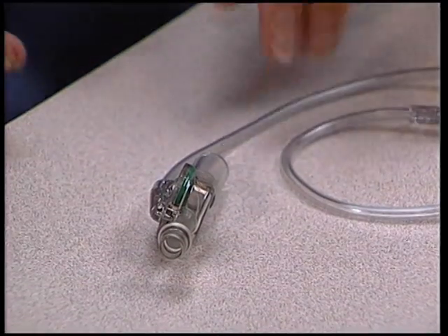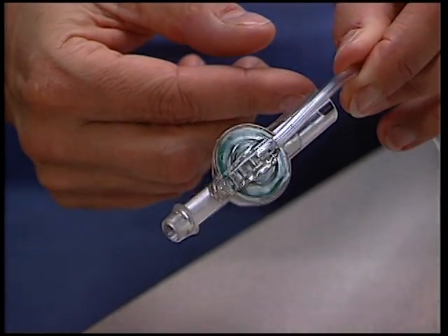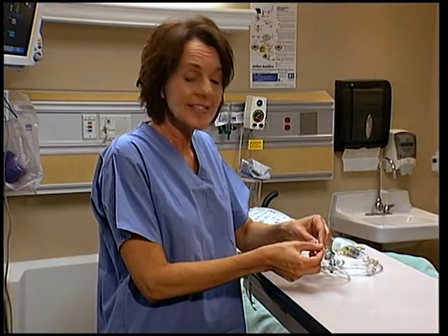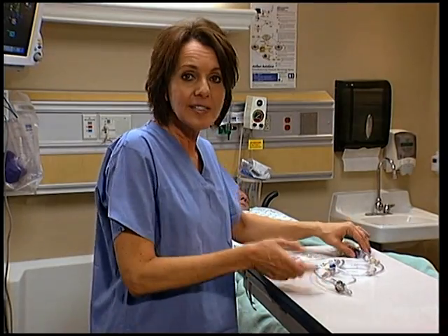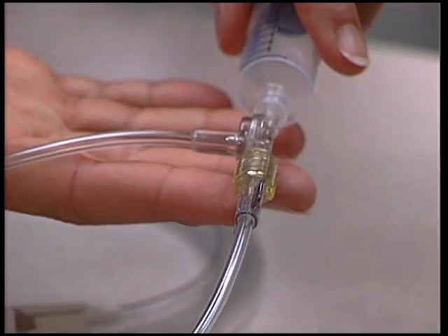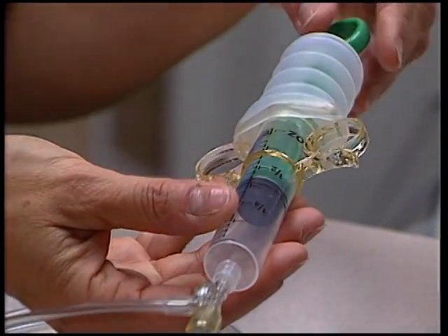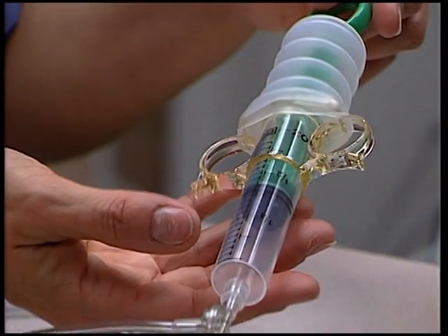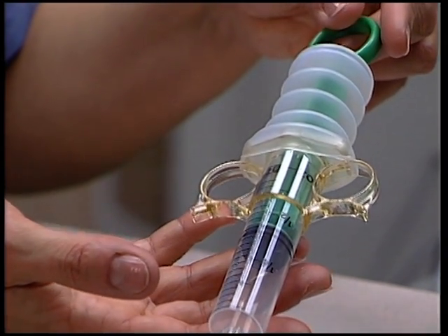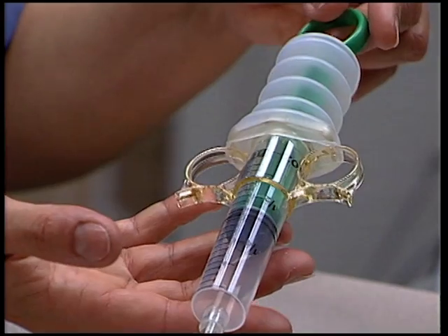First, the AbVisor Auto-Valve, which integrates easily with the patient's existing Foley and drain bag. Next, a unique double-check valve on the infusion line simplifies aspiration and infusion. And finally, a syringe with a contamination shield enhances the closed system, helping to reduce nosocomial infection risk.